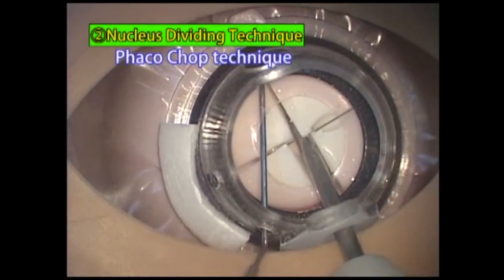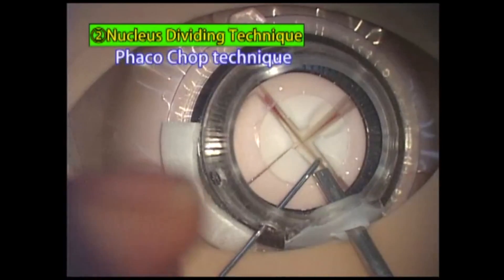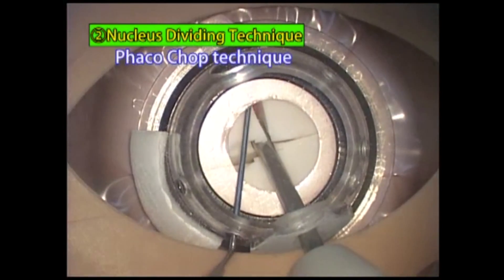These tools are clearly useful for learning basic instrument manipulation using the wound as a pivot. You can master the correct instrument manipulation by moving the instruments along the grooves, tunnels, and dividing parts, the positions and depths of which are ideal for the appropriate surgery.